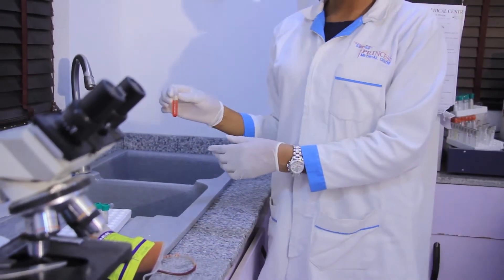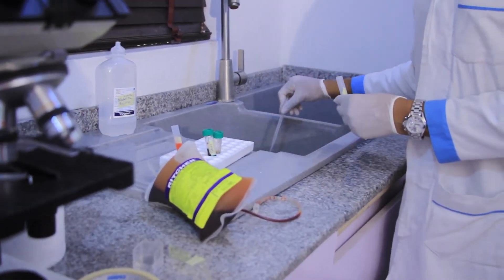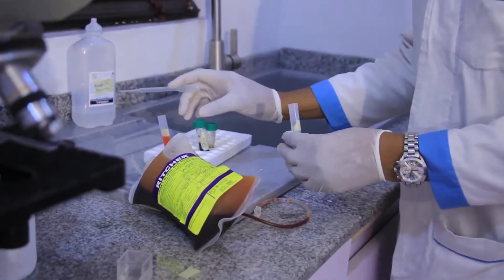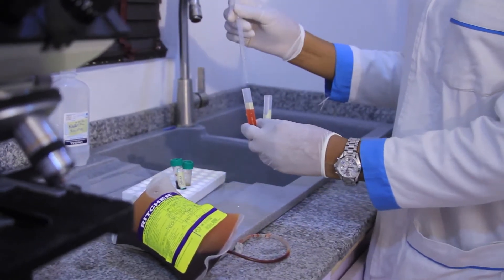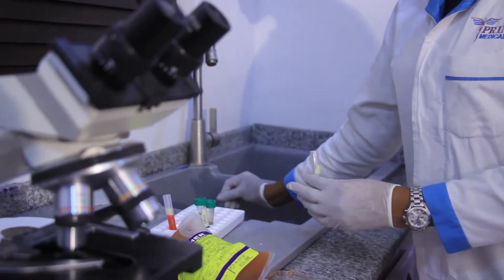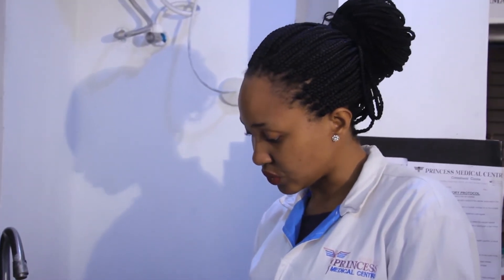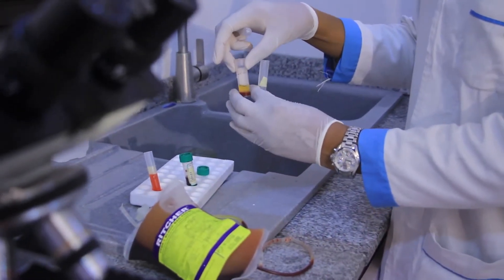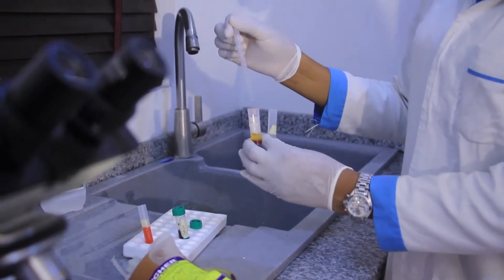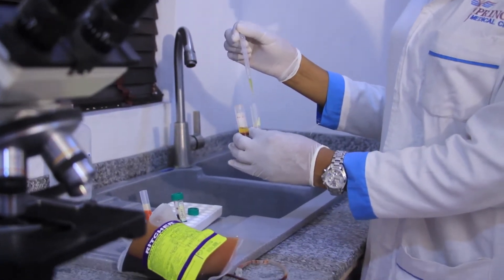This is what we have gotten after we have spun it. We tap off the mixture of normal saline and red blood cells. The next stage after washing is to add equal volume of the washed red blood cell — we're using 2 drops. We'll rinse the pipette. It's advisable to use a new pipette while doing this. Afterwards, we'll also add 2 drops of the recipient's plasma.